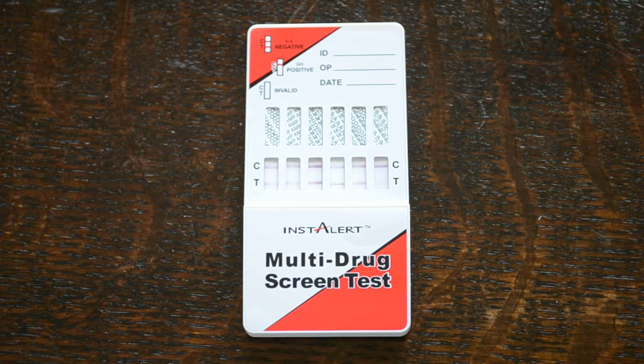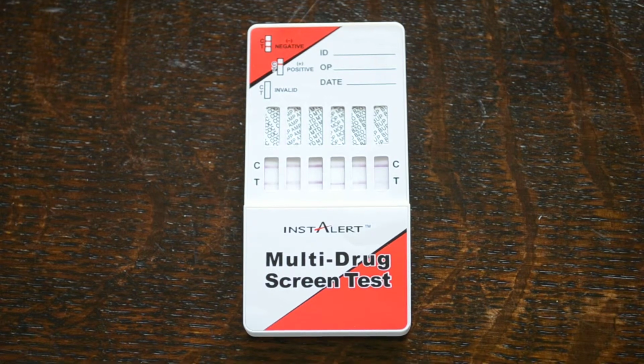And basically this is a competitive binding technology, as all these drug tests are. So if there's drug in the sample that you've added to the panel at or above the cutoff level predetermined for each of the individual drug groups, then that will completely saturate the test line and not allow any dye to form there. If there is an insufficient drug in the sample or no drug present, then the dye will form at the test line. So a negative result is indicated by a control and test line, and a positive result indicated by a control line with an absent test line showing at 8 minutes.